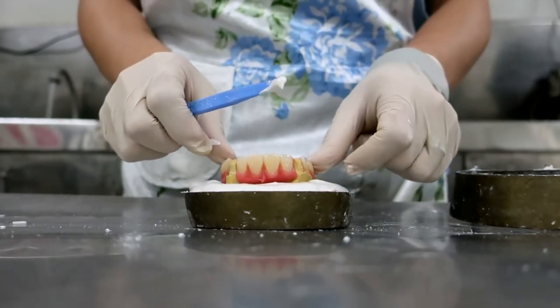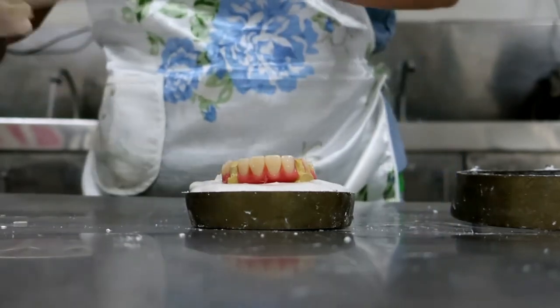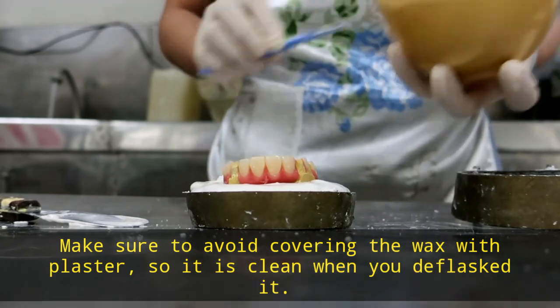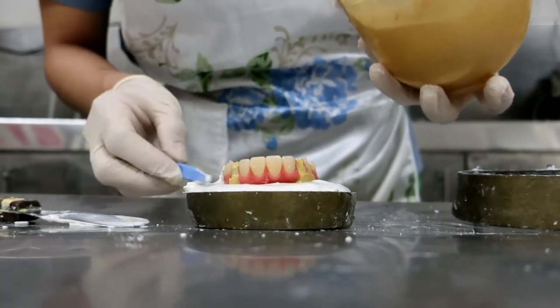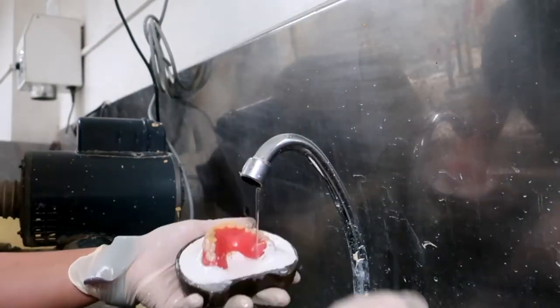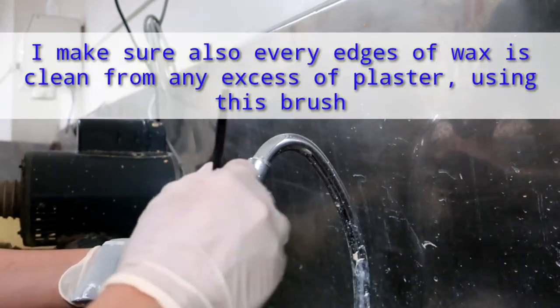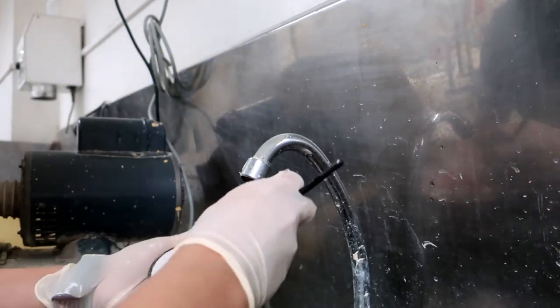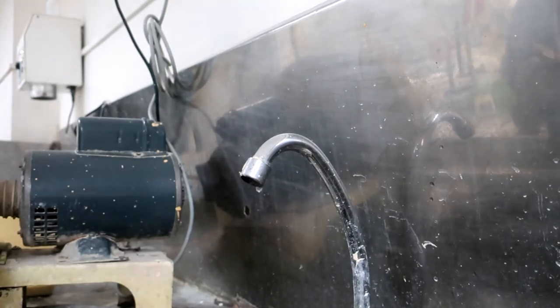In this part I just fill the undercuts and see if the borders of the wax are still exposed. Now with the use of a small brush I just clean the excess plaster off the wax. I make sure everything is clean around it.